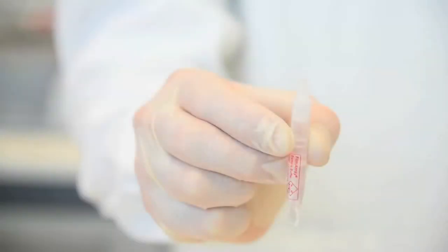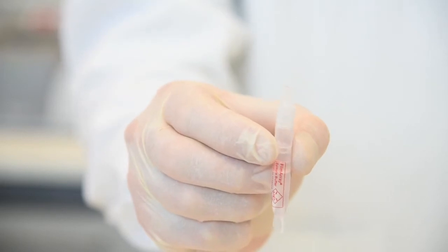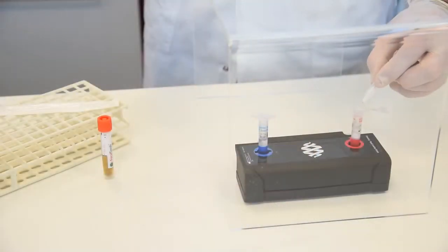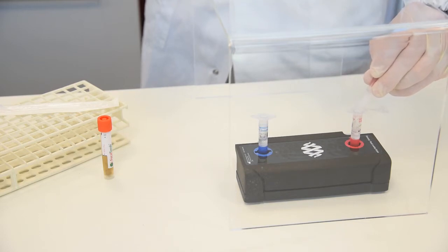Step 3, Prepare sample mix. Add sample buffer to sample injection vial. Invert sample buffer ampule so that tip is facing up. Note, do not touch the tip of the ampule. Firmly pinch textured plastic tab on side of ampule until seal snaps. With the tip facing down, dispense sample buffer into sample injection vial using a slow, forceful squeeze, followed by a second squeeze. Avoid generating excessive bubbles.